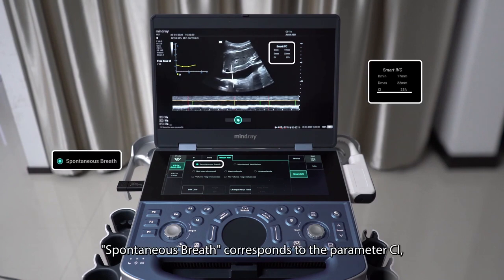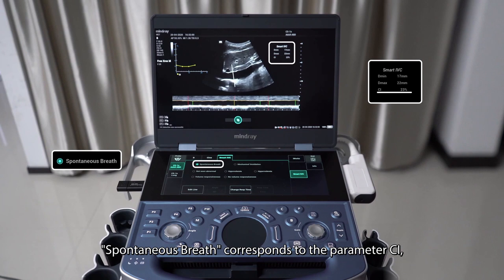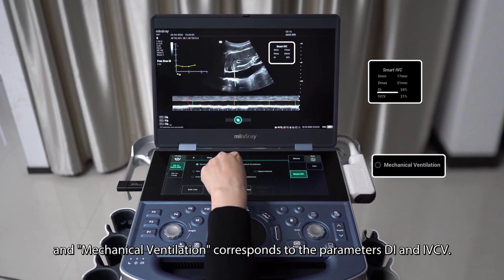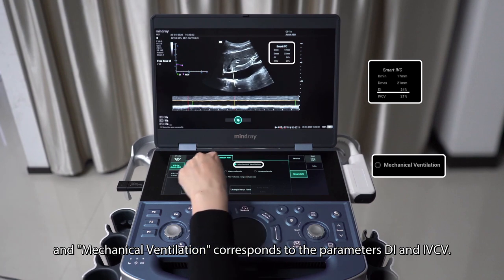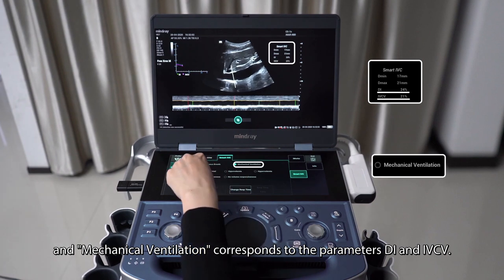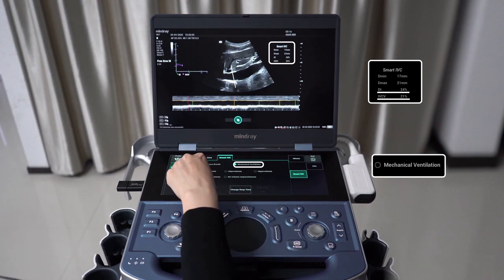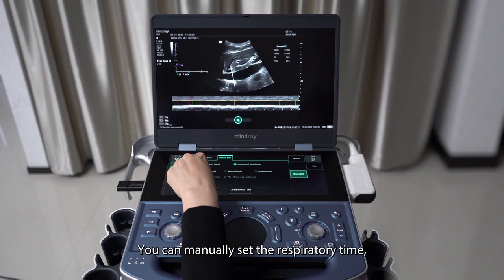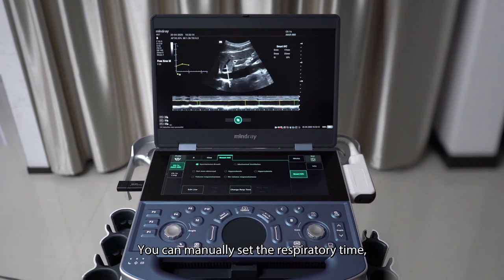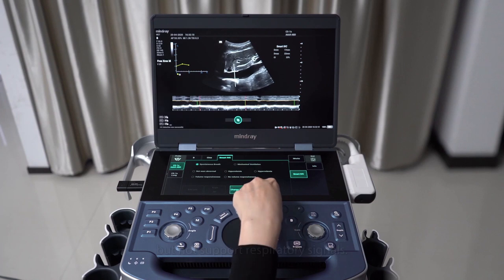Spontaneous breath corresponds to the parameter CI, and mechanical ventilation corresponds to the parameters DI and IVCV. You can manually set the respiratory time, but respiratory signals are not supported.